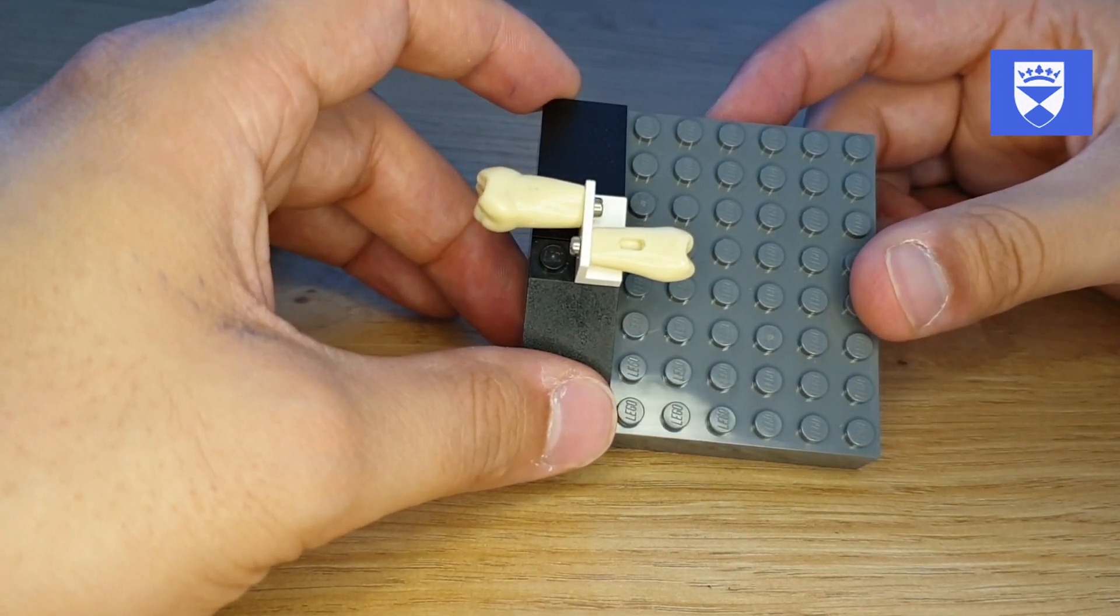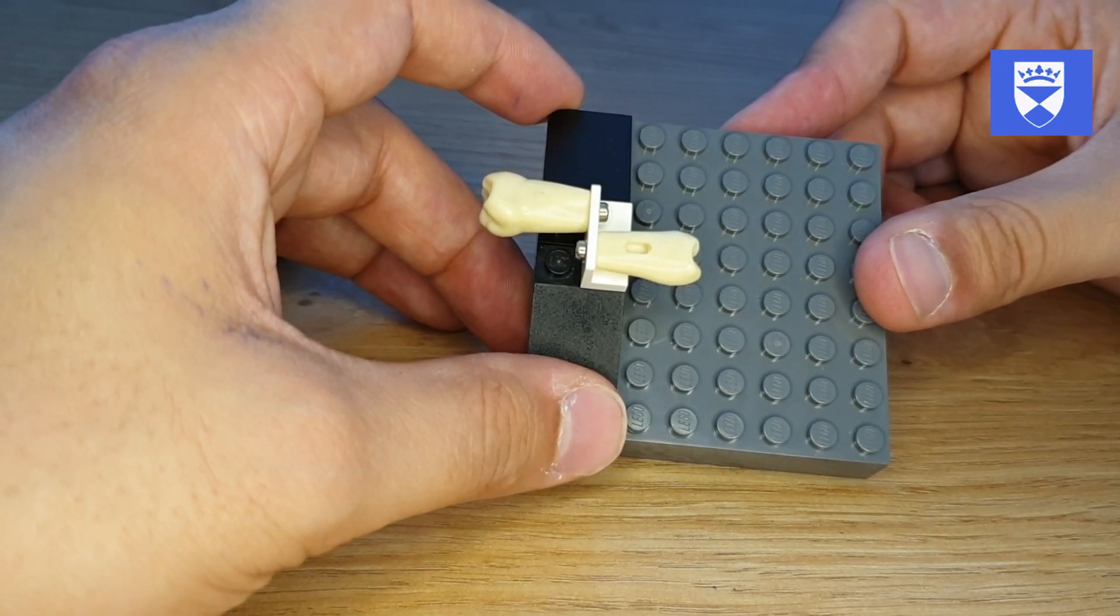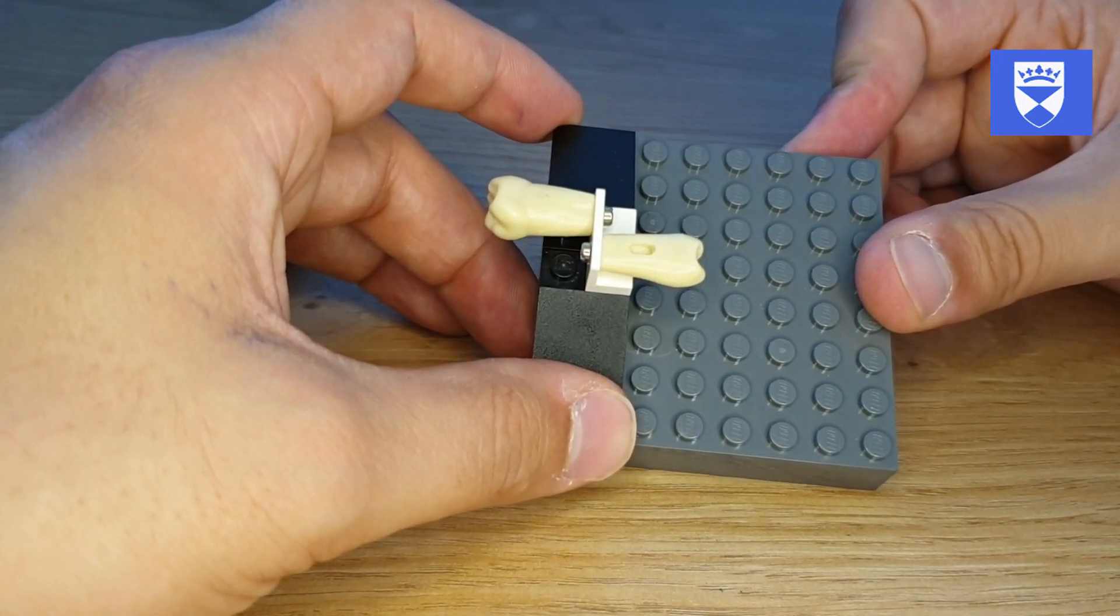This is the first exercise that the students undertake when they're becoming acquainted with rotary handpieces.